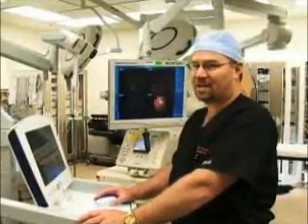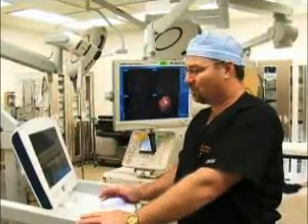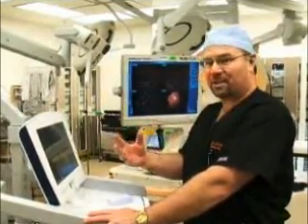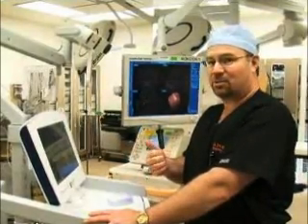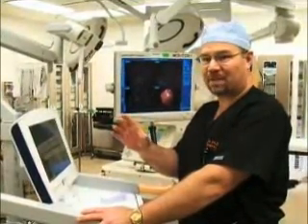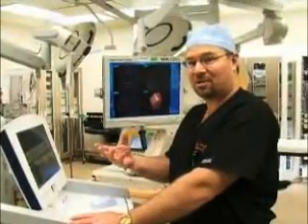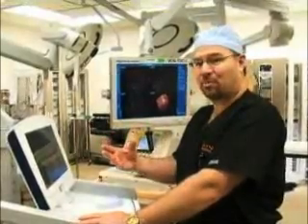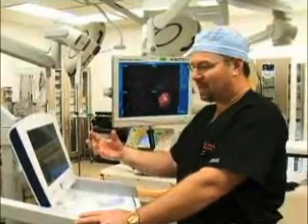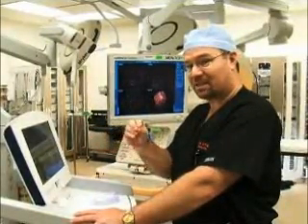This is a frameless stereotactic navigation system, which is essentially computerized guidance for brain surgery. Images are put into this computer, and then we can create a preoperative plan for several reasons. One plan is to make sure that we can limit the size of our opening — we can be as focused and targeted as possible. In the past, this wasn't possible with any significant degree of certainty; we tended to use much larger openings. Now we can focus with image guidance, make a preoperative plan, and go right to the spot precisely that we intended to go to.